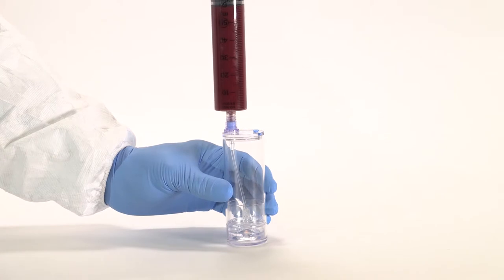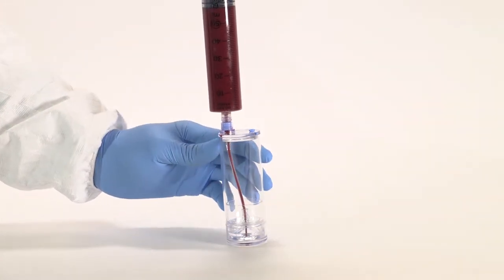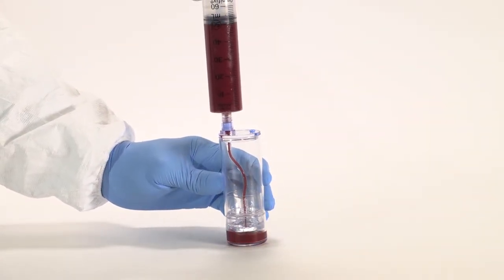Attach the 60-milliliter blood syringe to the needleless port and slowly inject the anticoagulated blood into the device.